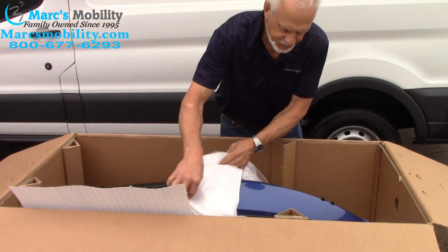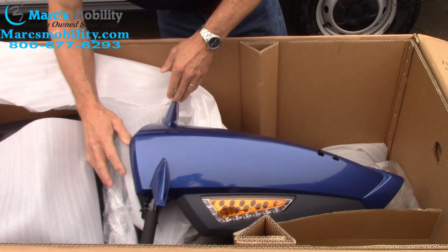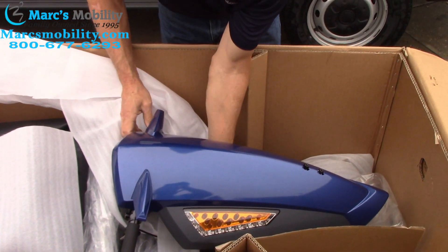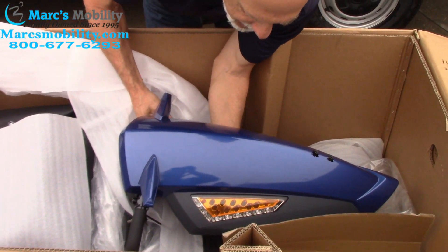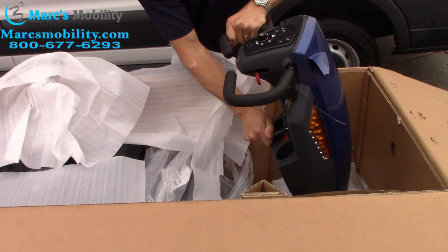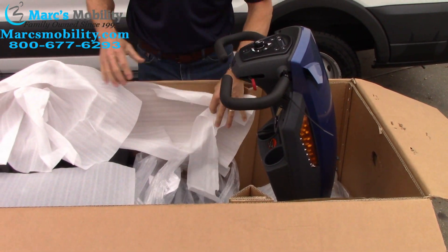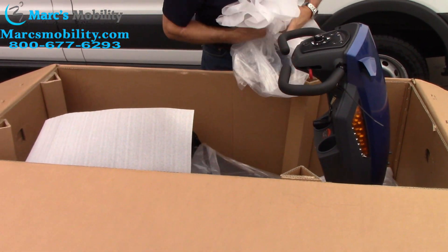And the tiller — you will unwrap the tiller like this. This is the tiller here. Unwrap it. Right below your tiller, there's a handle right here. So when I went under there, I pulled the handle down and pulled the tiller up. Get the rest of the plastic out.